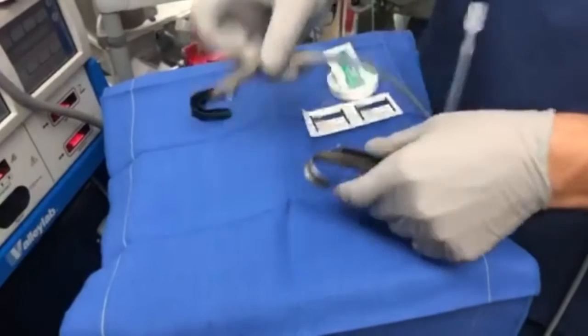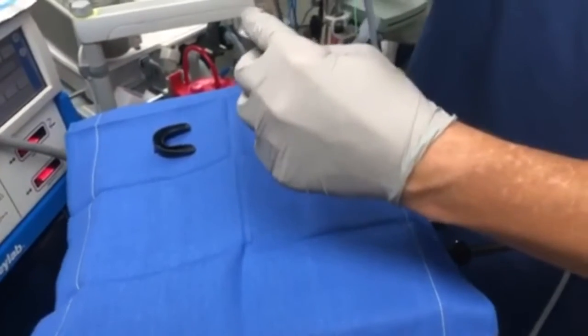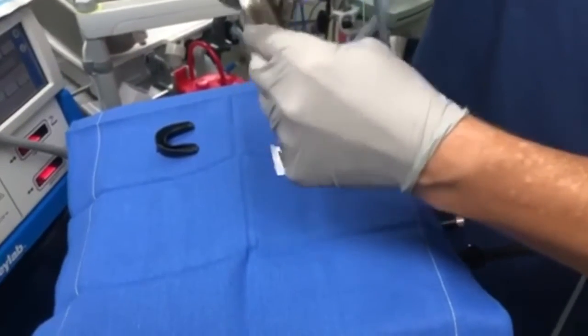It's important to test all equipment prior to the patient entering the room. This includes functioning of the light box, the video tower, and the ventilating bronchoscope. The assembly of the Parsons laryngoscope and testing is shown in this video.